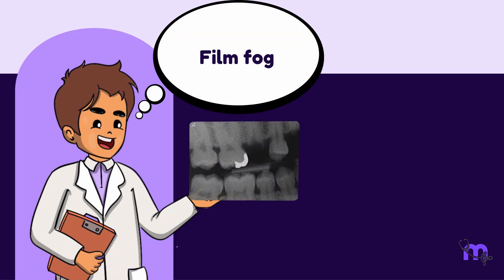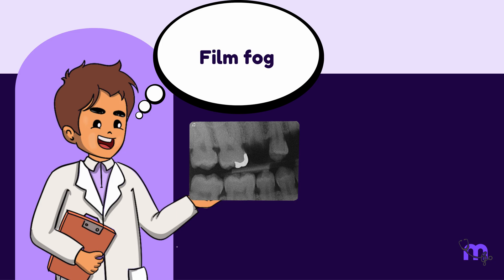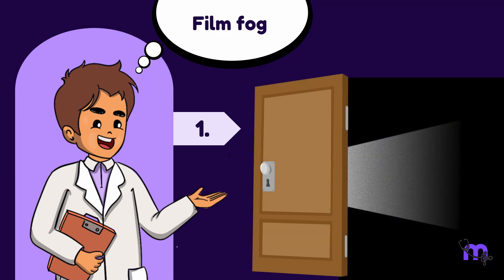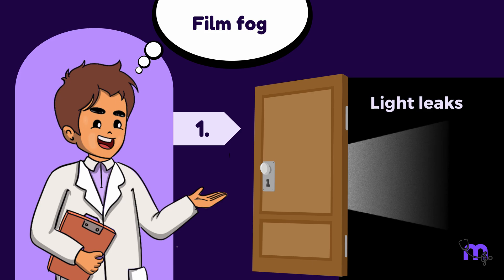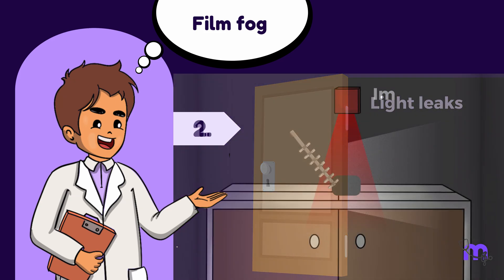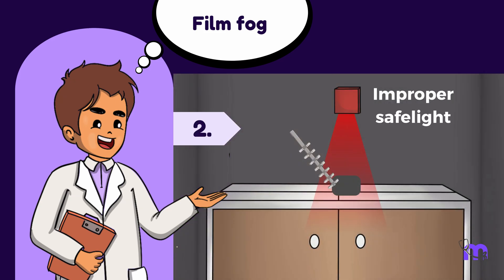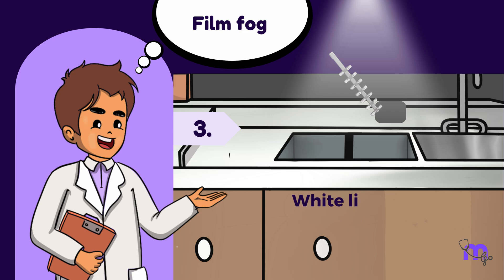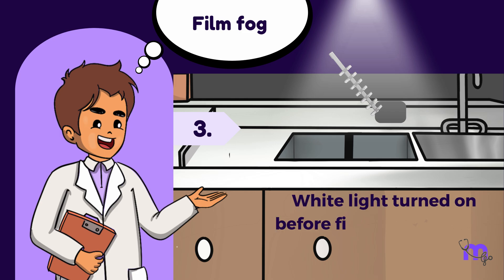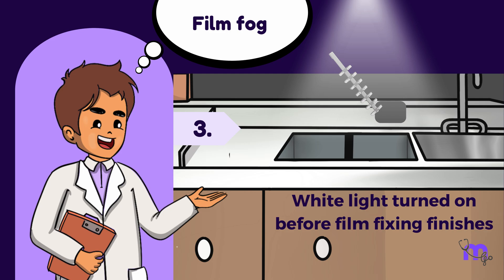Film fog is a common error that arises from mistakes in the dark room. It occurs when light leaks are present, the safe light has improper wattage or positioning, or the white light is turned on before the film finishes fixing, typically within 1–2 minutes.